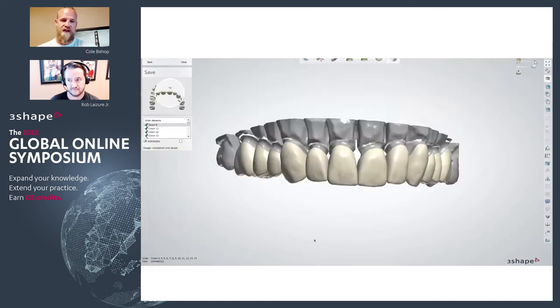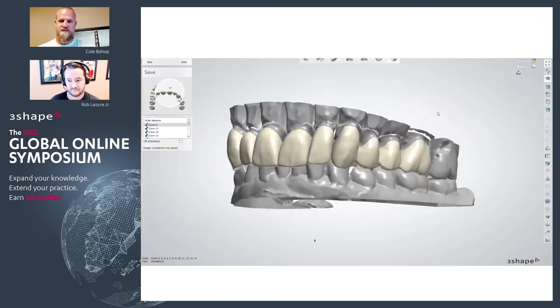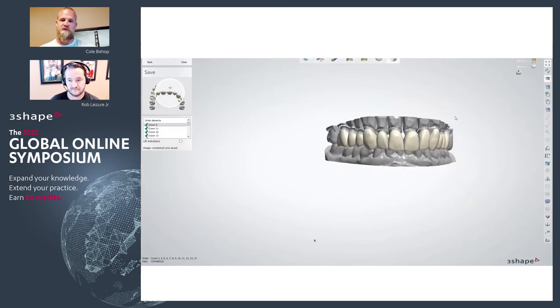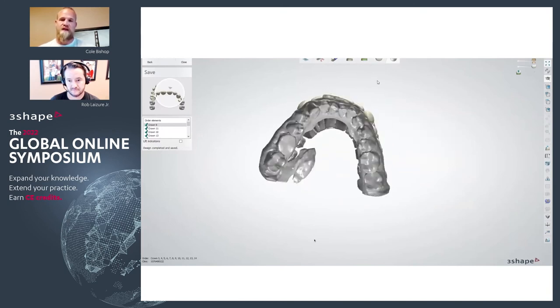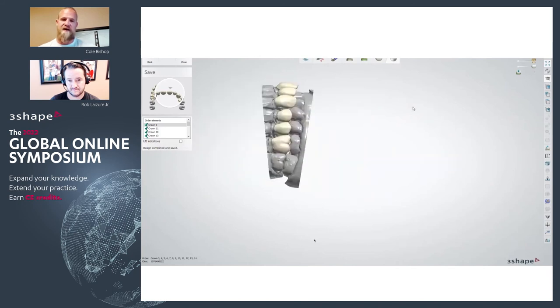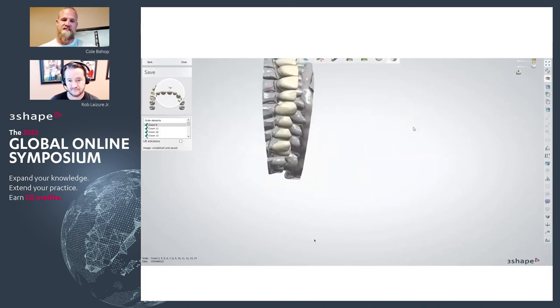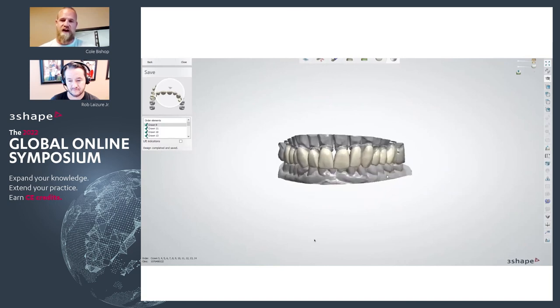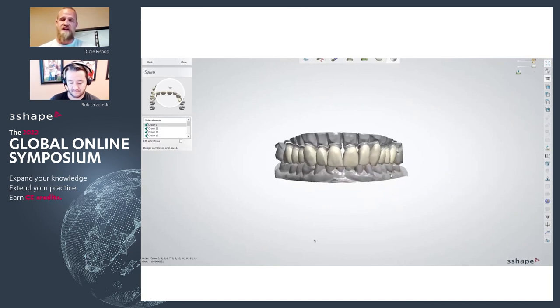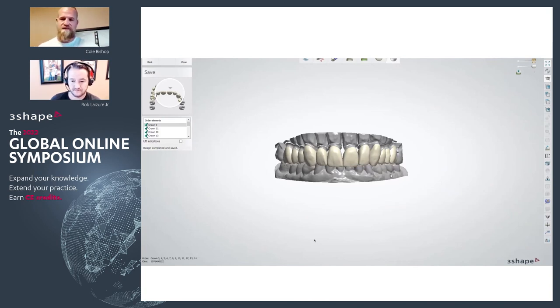One thing I wanted to touch on: I did a little test with some of our designers on this just to see what kind of time savings they had using this workflow. In general, we are seeing about half the design time, just because you already have that maintained posterior anatomy to work against. It's a really nice way to get through these bigger cases where the single units for the posteriors are handled and you can focus a little bit more on the detail on the anteriors.